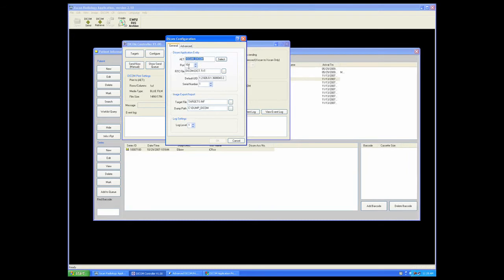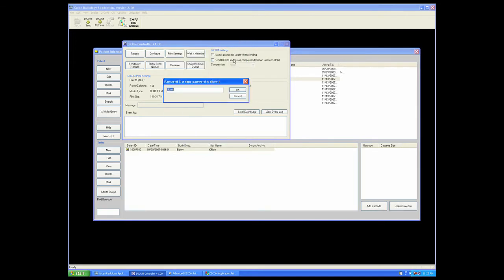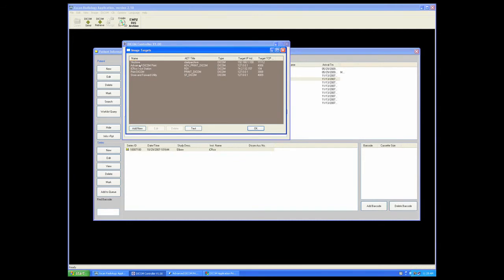Once we've established an application's entity title for your workstation, we will configure targets. Opening the target button will give us the list of DICOM targets that we will be sending images to. Add new.